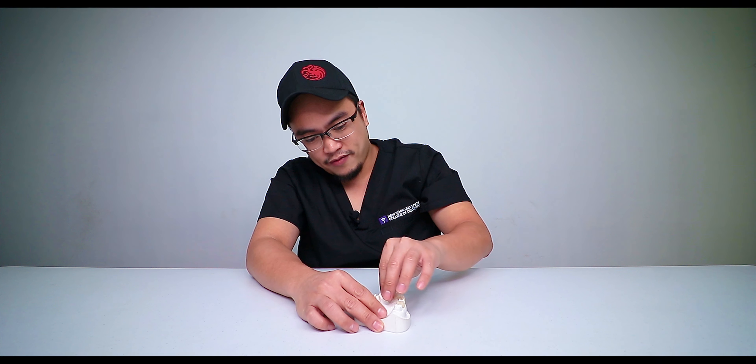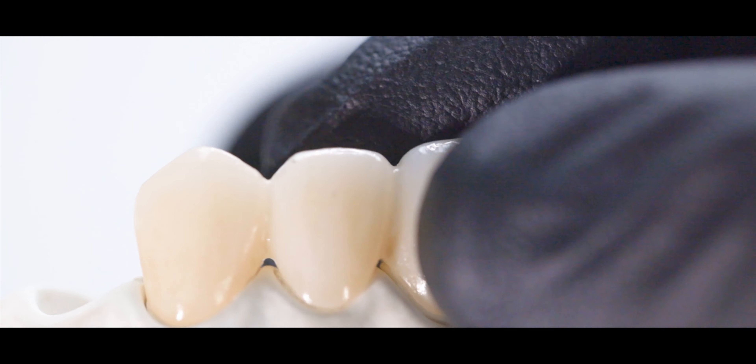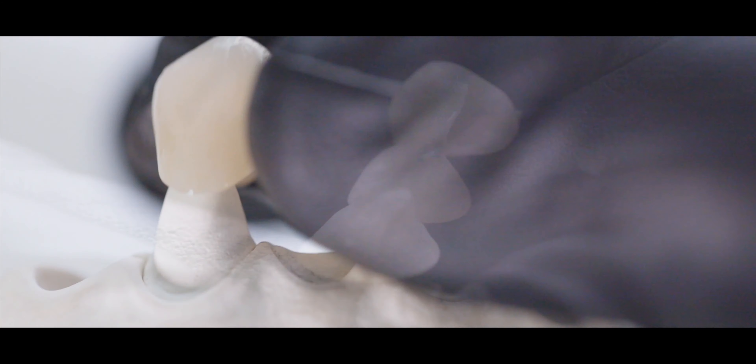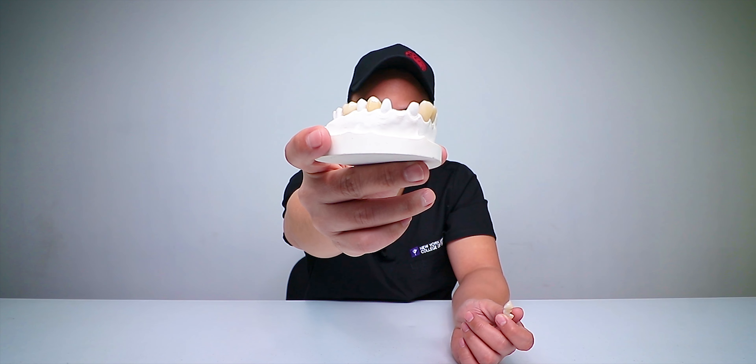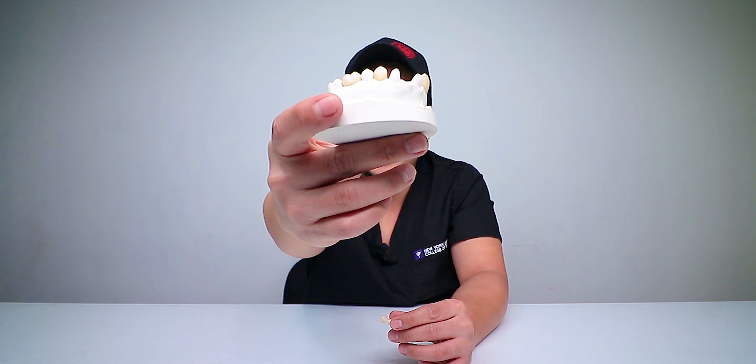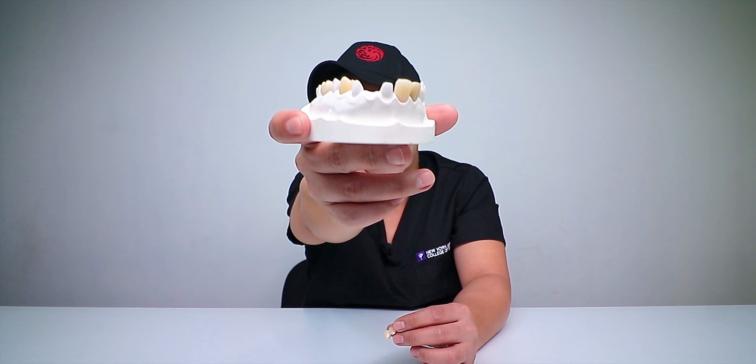Next to that we also have the crown and bridge. I'm able to show that this is what happens when you do a crown and bridge — the dimensions make sense, the size is something they can relate to. They can even hold it, play with it. The veneer is very delicate even in the model.